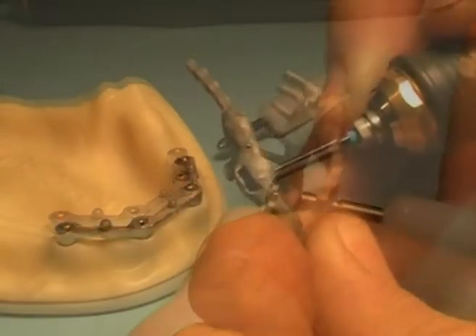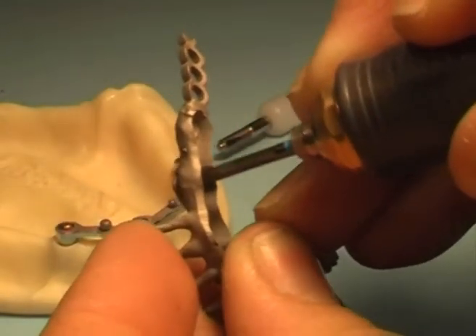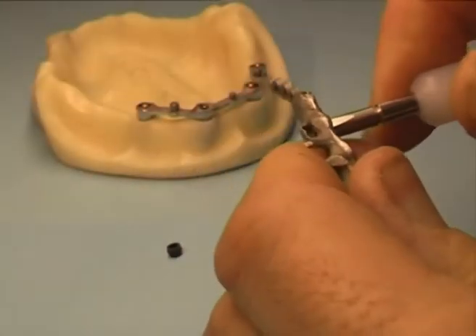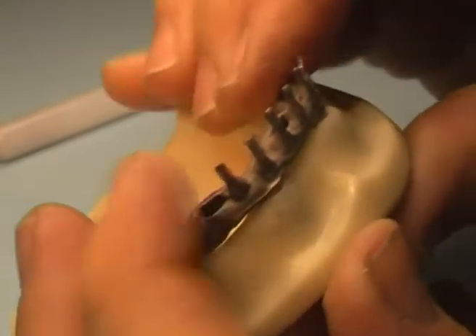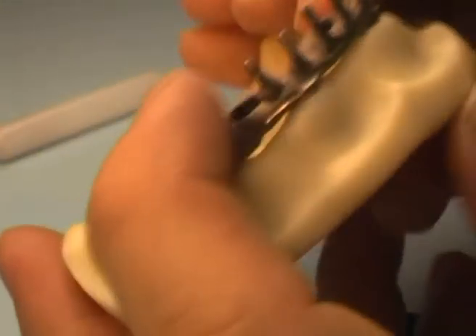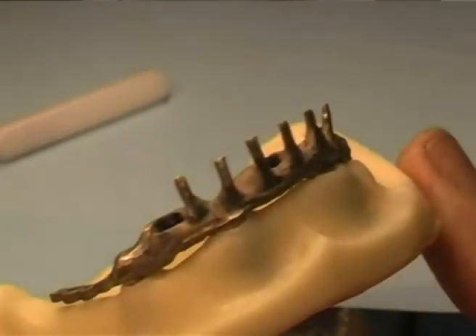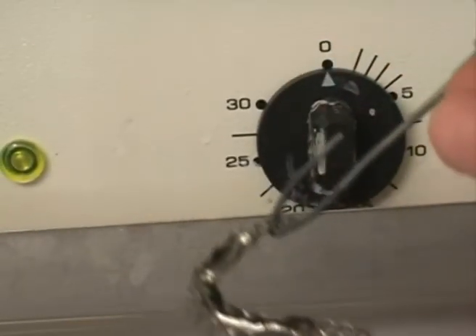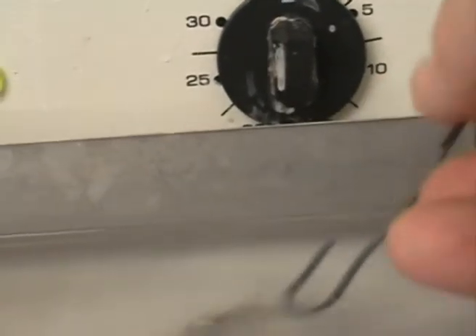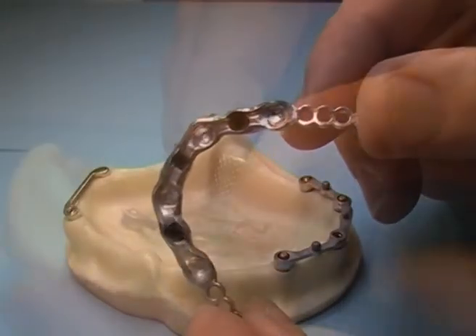Cast and sandblast the overstructure. Polish it without wearing out the cast boxes for retentive caps. Insert black processing caps into the boxes by using the insertion tool. They will firmly click into position. Try bar insertion and check the whole assembly. A chrome cobalt alloy has been used in order to obtain a strong but lightweight cast structure. Proceed with electropolishing, leaving black caps inserted into boxes as a protection.